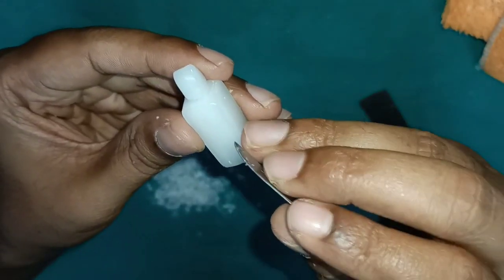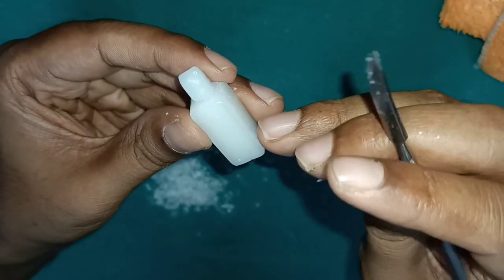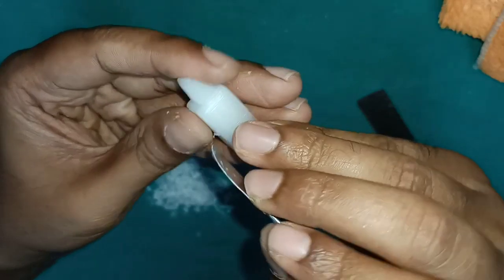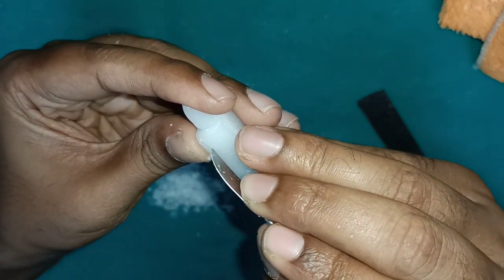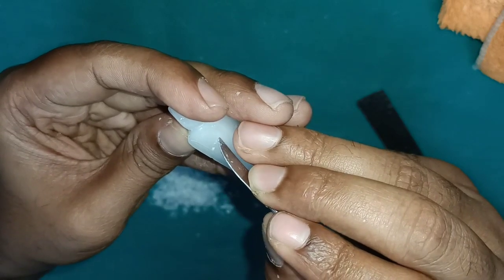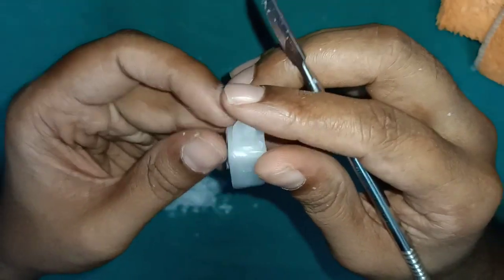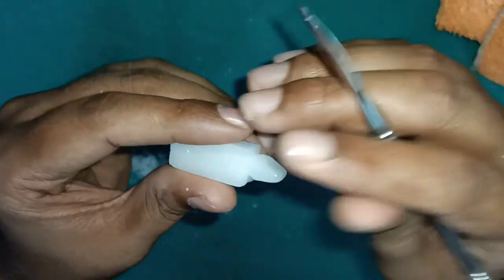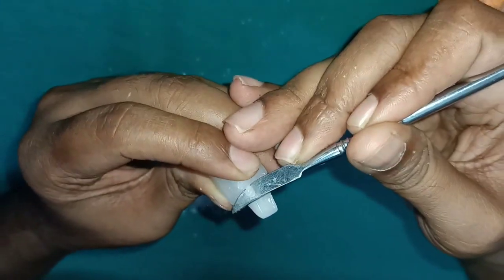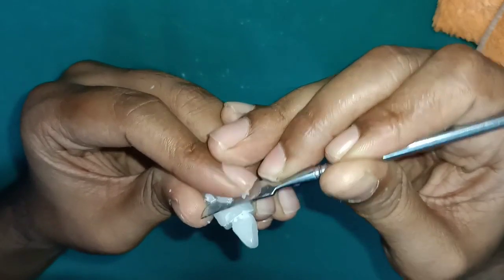Now we see the initial step in carving the root portion of the tooth. Since it is a single, small root, draw the conical shaped outline on the root aspect of the block. As we did for the maxillary central incisor, start carving on the mesial aspect, then lingual, then distal, until you reach the outline of the labial and lingual. Remove the wax from here first. Always hold the carver slanting when you are carving the root portion.